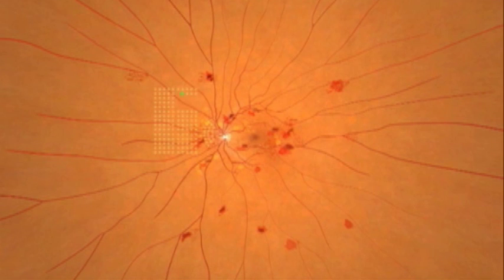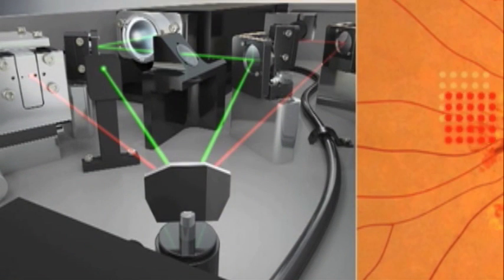The key to PASCAL is its proprietary advanced control system, which is fundamentally different from conventional lasers.